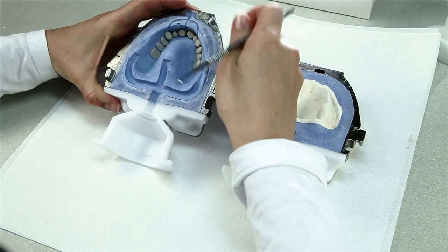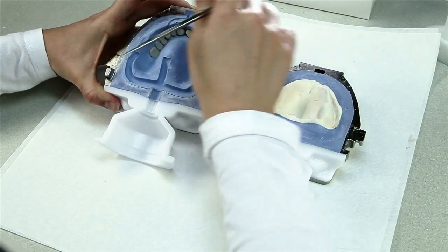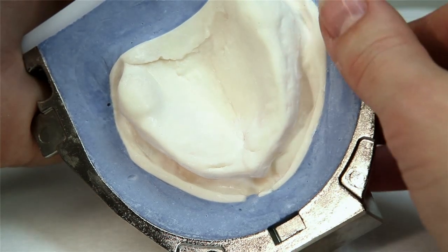Now remove stone residue sticking to the flask edge, isolation shoulder, and recess for the aeration filter.